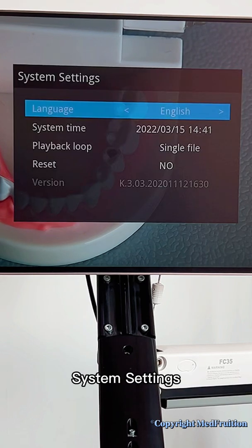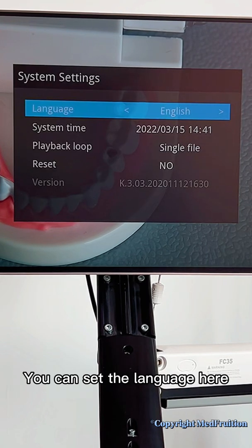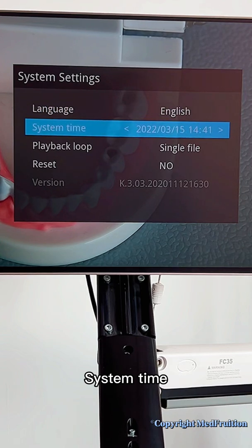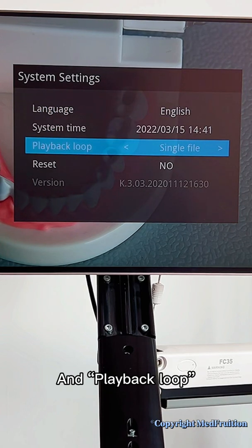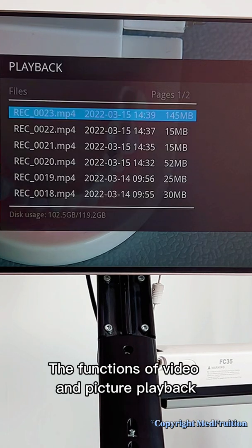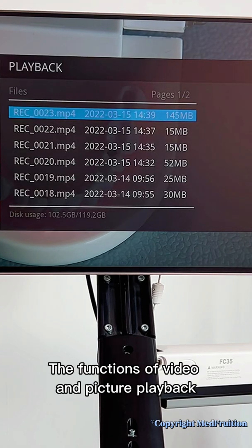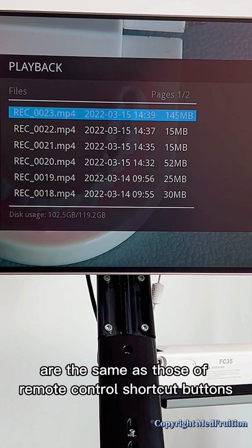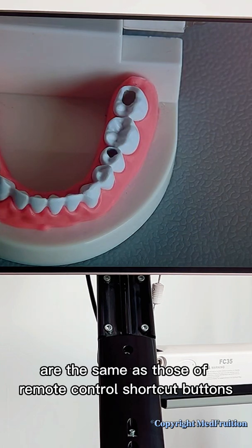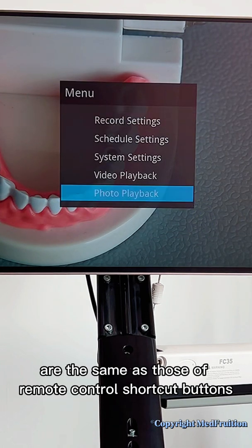System settings: you can set the language here, system time, and playback loop. The functions of video and picture playback in the menu are the same as those of the remote control shortcut buttons.